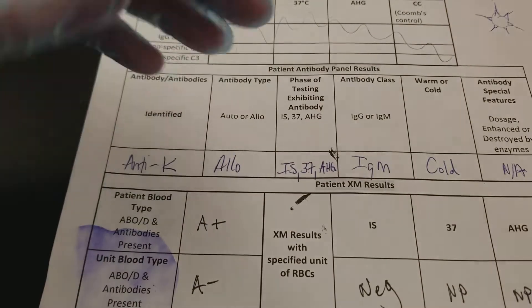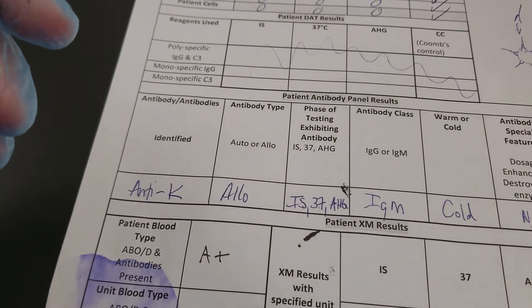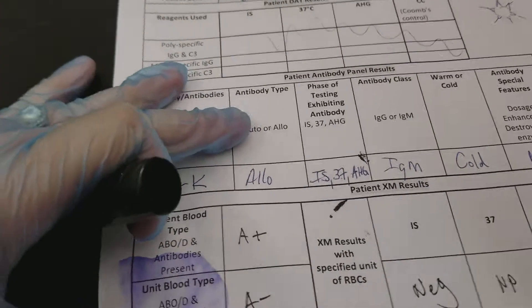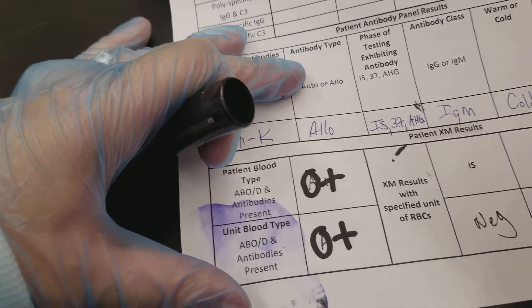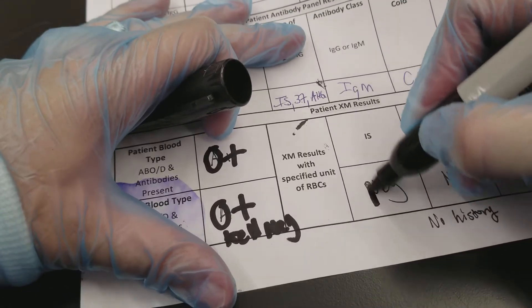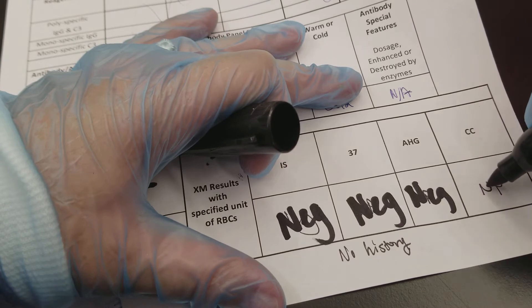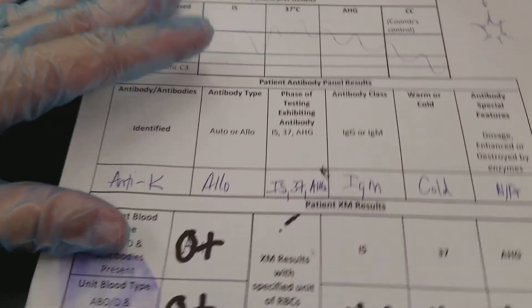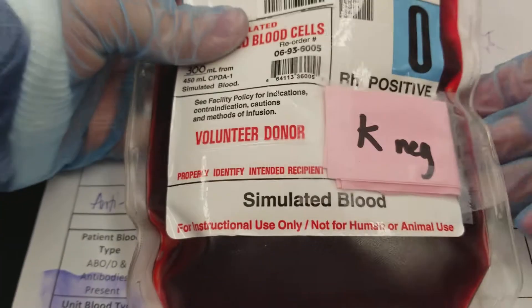If we were to fill this out correctly, we would take the stickers off of the back of the unit, put it on the paperwork and on the blood distribution form. In that case we would say the patient was O positive, the blood unit given was O positive and Kell negative. The reaction would need to be negative at IS, negative at 37, negative at AHG, and positive at the check cells. Then we would be able to distribute this Kell negative unit to the patient. We can do another video to talk about the blood unit distribution.